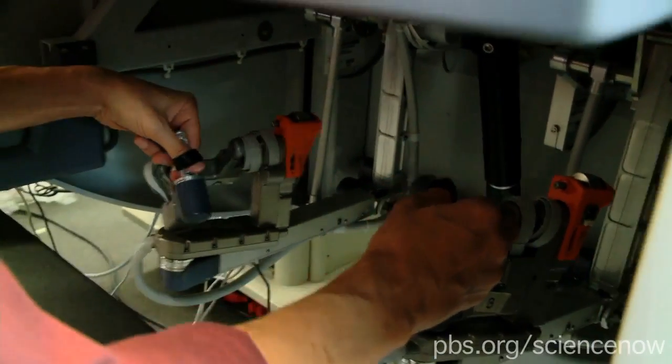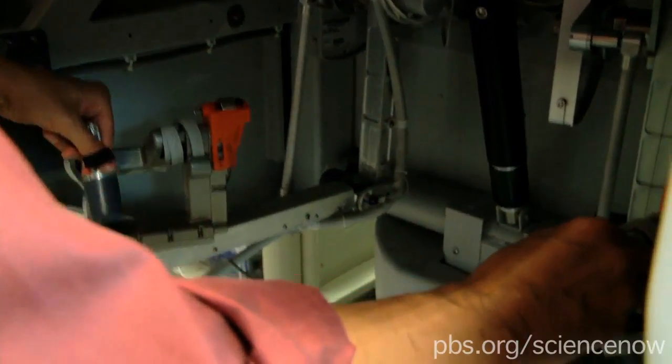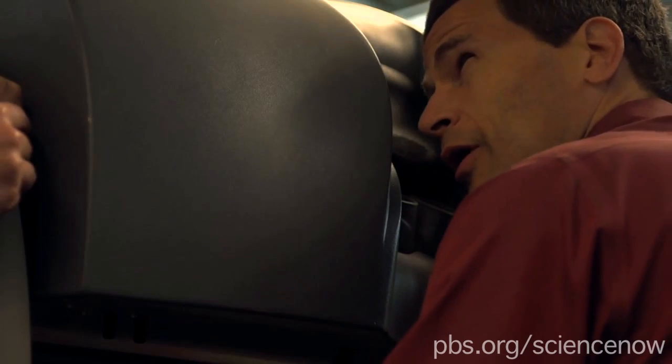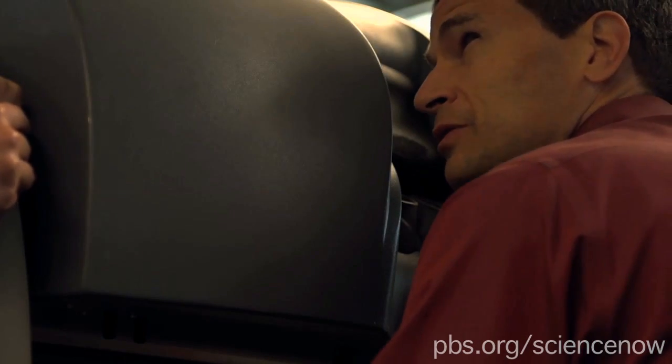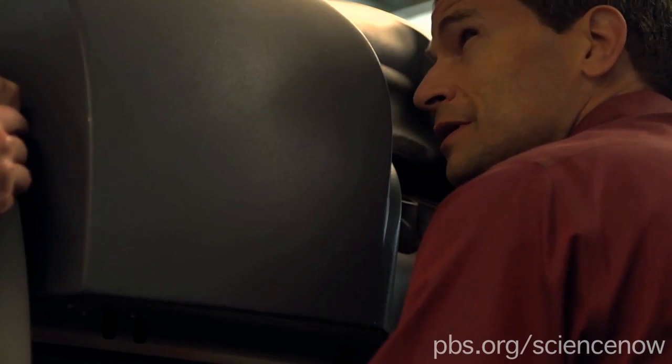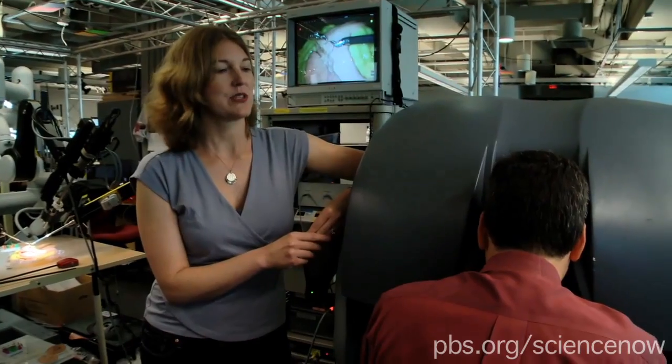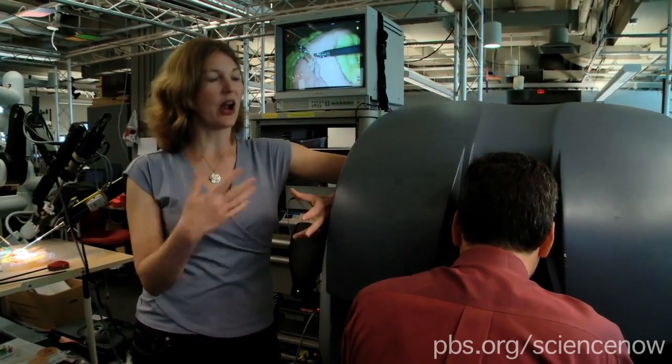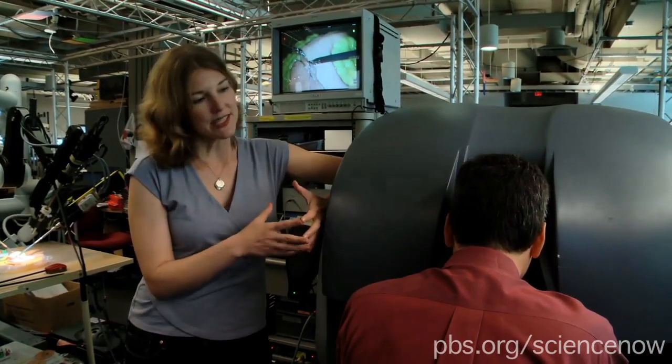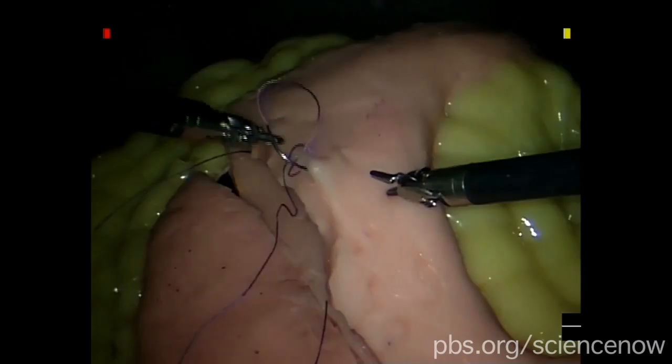It's almost horrifying to think of robotic remote surgery before this. They'd have no idea how hard they're pressing or if they're about to puncture some delicate tissue. The surgeons get very capable at doing surgery even without this kind of feedback. We hope this is just like an augmentation, like taking your TV from being black and white and making it color.